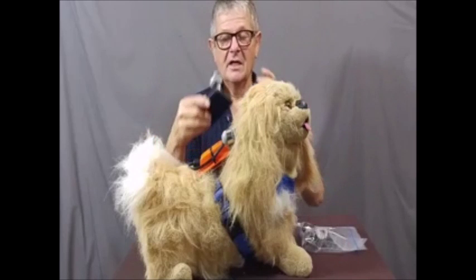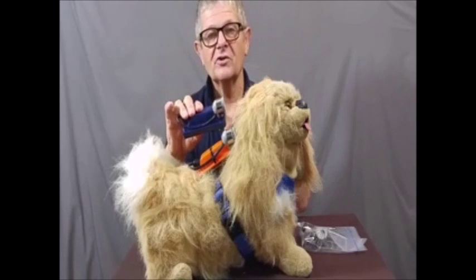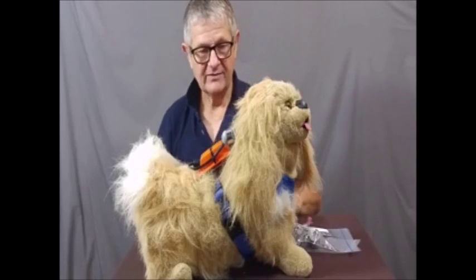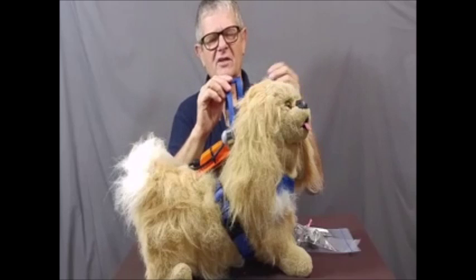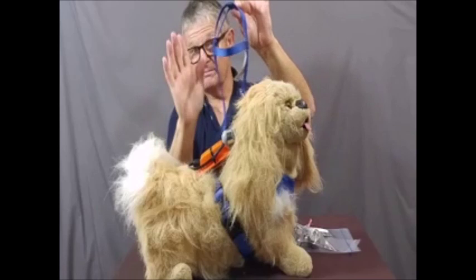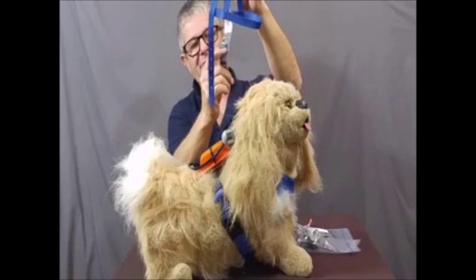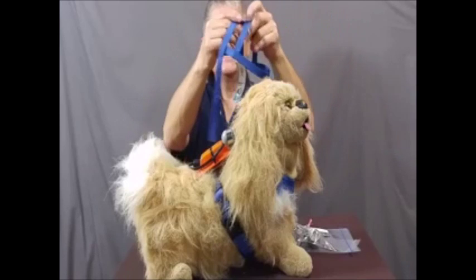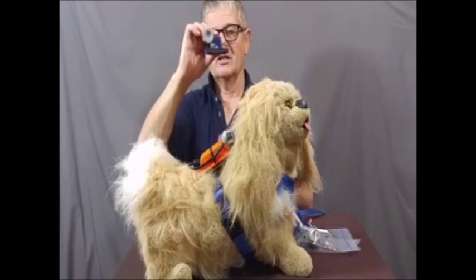All of that is free. If you order a blind sight Charlie it comes with it. If you already have a blind sight Charlie and you'd like to switch to a one-piece and get the quick battery change kit, we're going to give it to you. Our old harness was a conventional pulling harness and the trouble with those was they'd slap left to right. We got one from Scott Pet which was better and extremely lightweight, but it still wanted to go left to right.